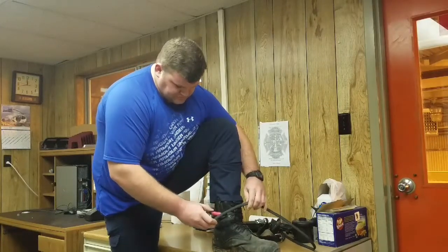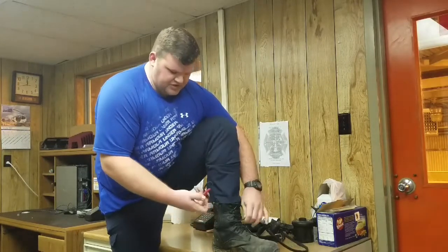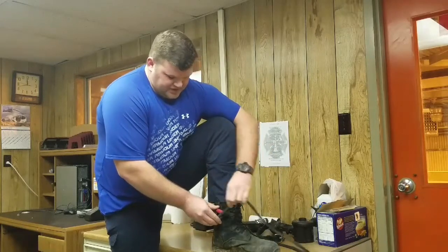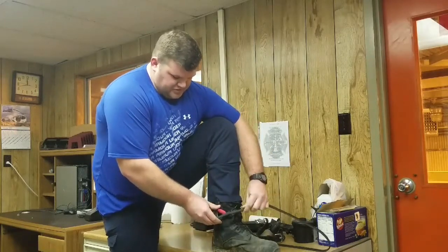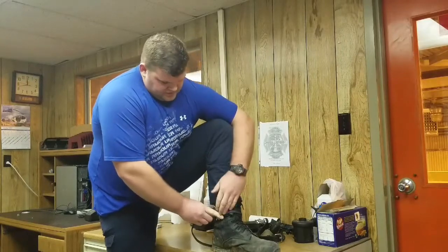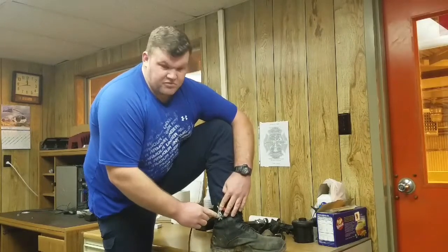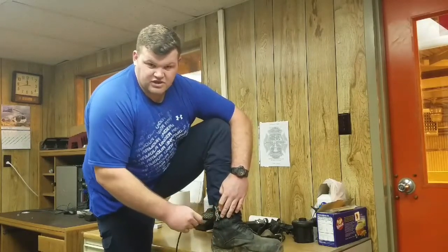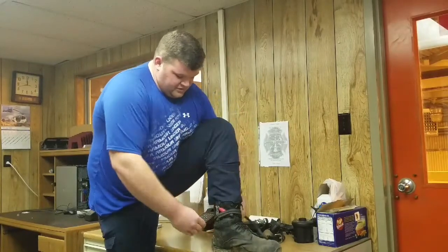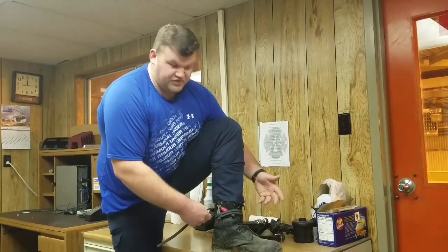I've tried it on this side, out in the front. I haven't really noticed any issues with it catching on my other foot or anything like that. To put it on, I put the loop end down first, and on the first wrap I take this elastic and kind of smash that loop down, just so it makes less of an imprint on the second wrap. Come down, hit the bottom end of the buckle, go over there.